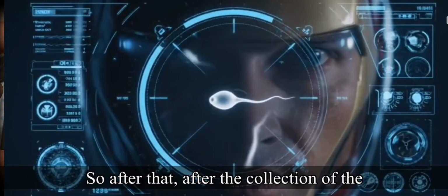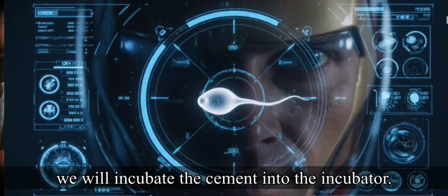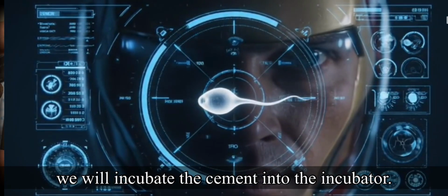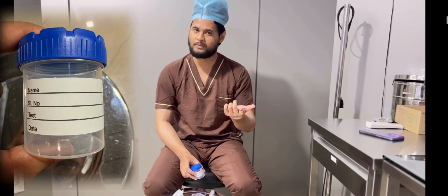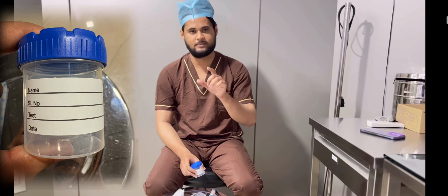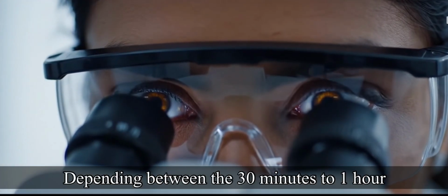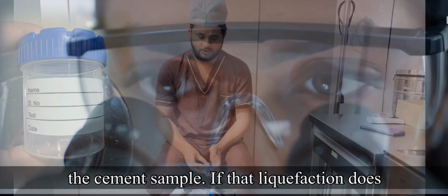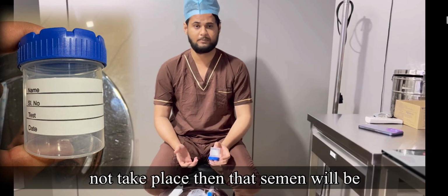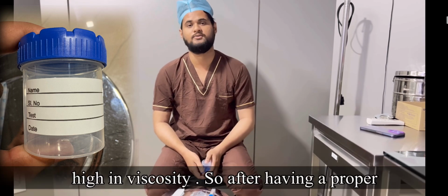After the collection of the semen, we will incubate the semen in the incubator at a temperature of 37 degrees Celsius. As we have already discussed about incubation, the liquefaction of the semen takes place in between 30 minutes to 1 hour, where incubation will ultimately liquefy the semen sample. If liquefaction does not take place, then that semen will be reported as high in viscosity.